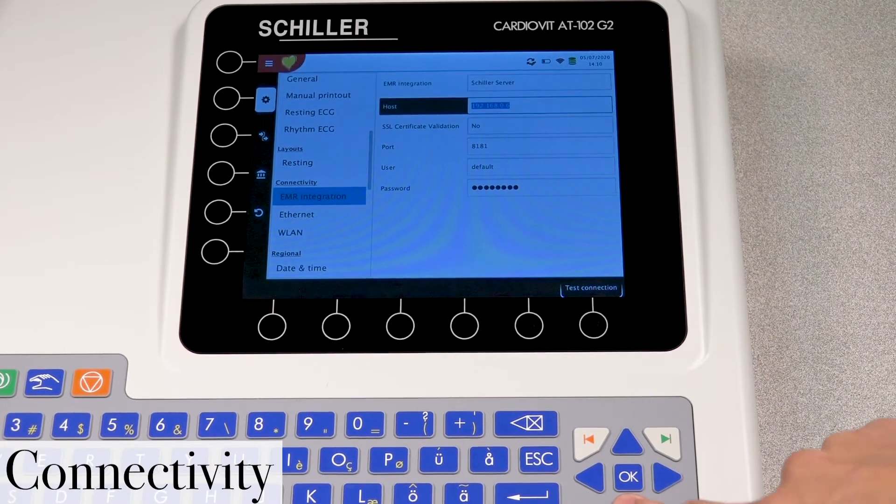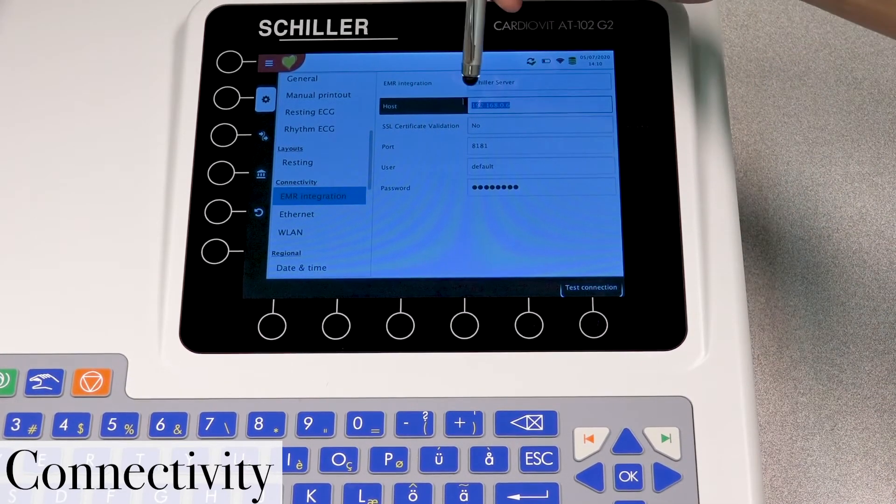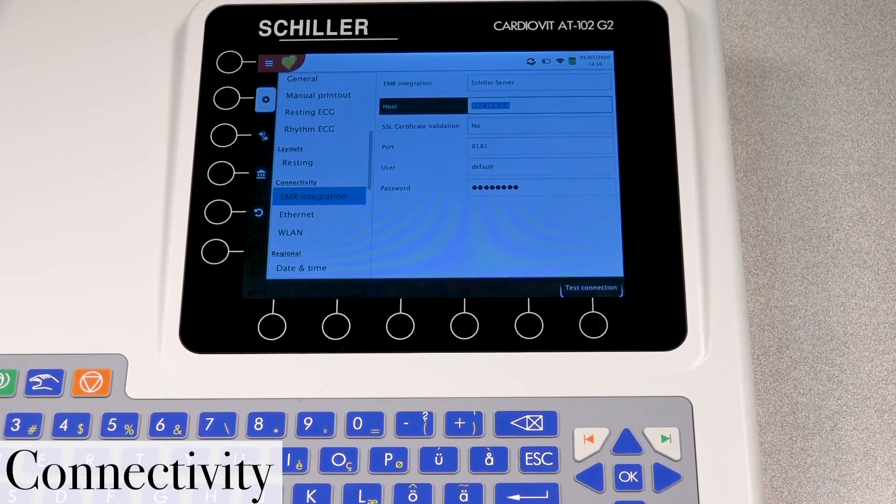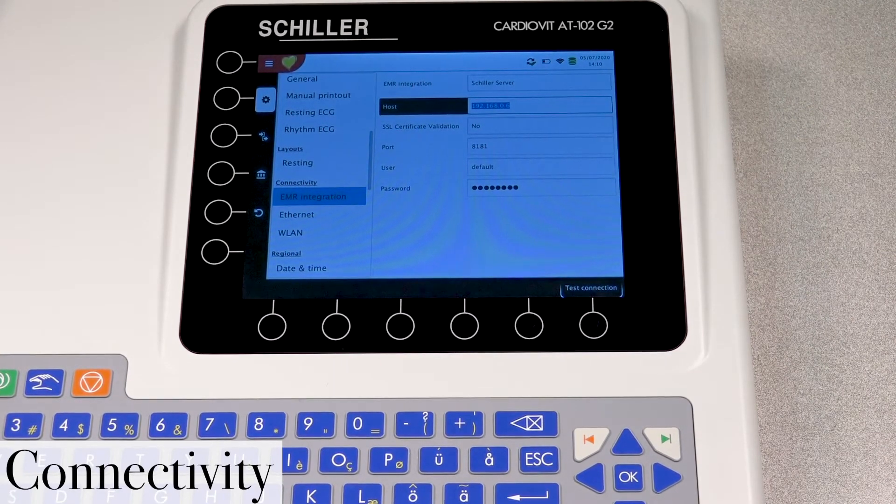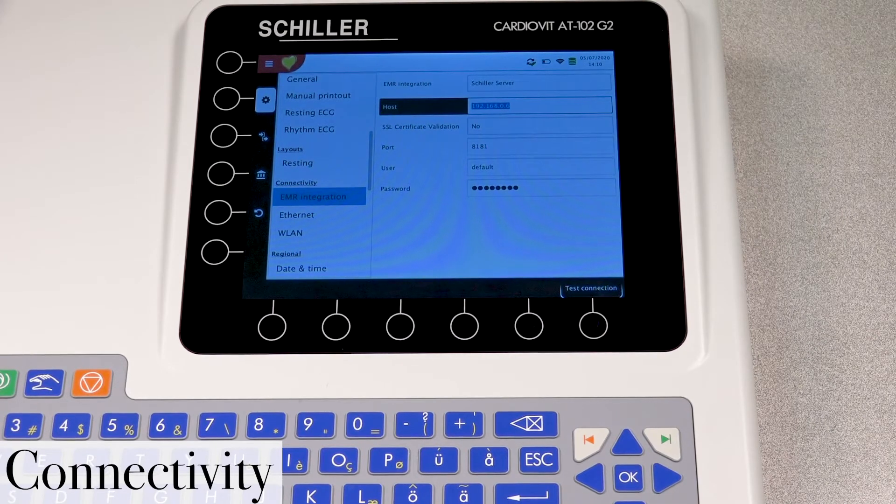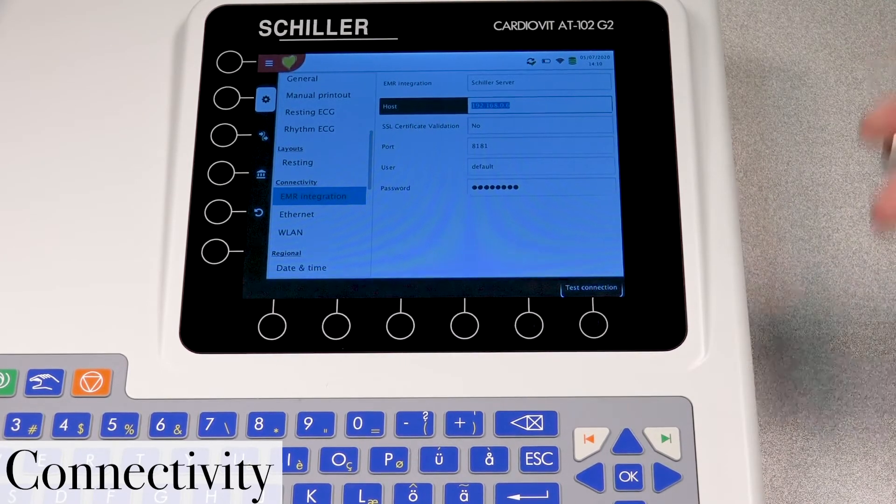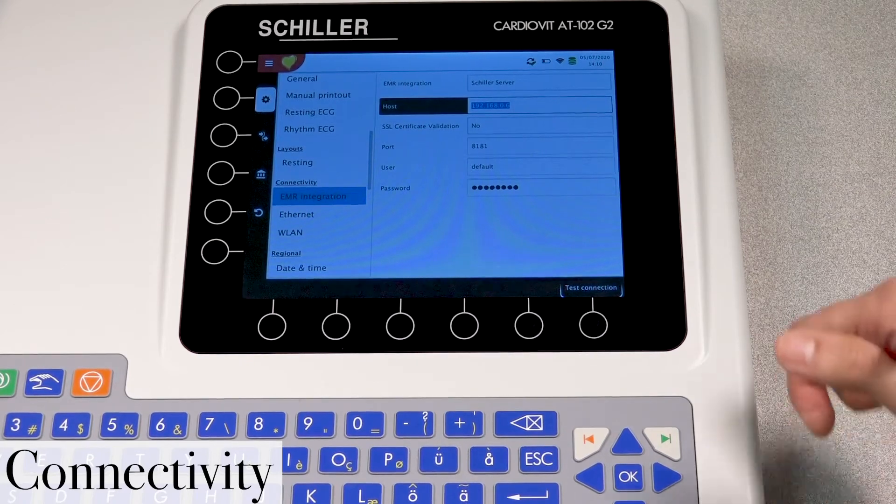And then the host. Now in the host is actually where your IP address goes. Now the IP address must be the one to the server. And it must be entered correctly. Otherwise, the transmitting over to the server will fail.